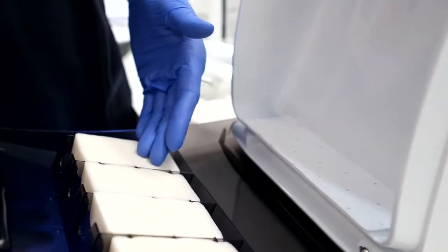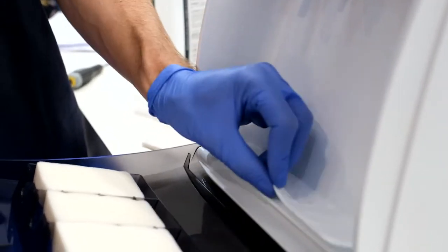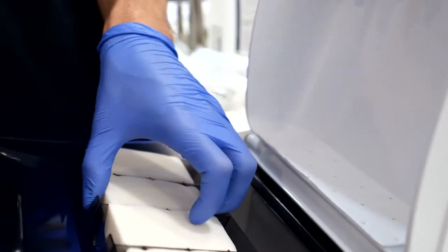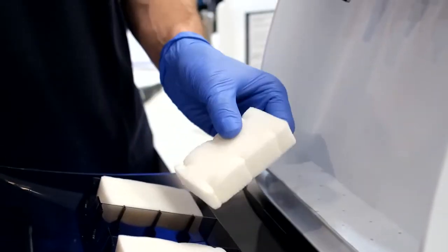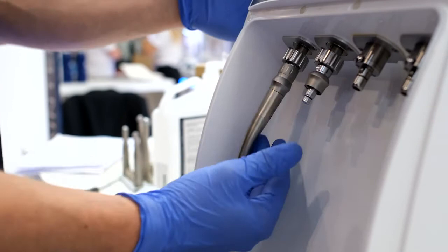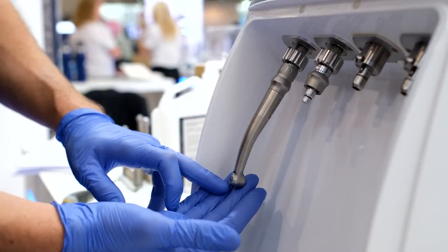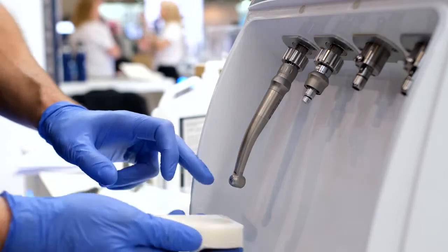Make sure you are regularly checking the mist filters and oil absorbing sheet inside the unit and replacing them when signs of debris start to appear. Always make sure the bare end of the handpiece is facing outwards towards the mist filter so that the filter can catch any oil and debris coming out from the handpiece.